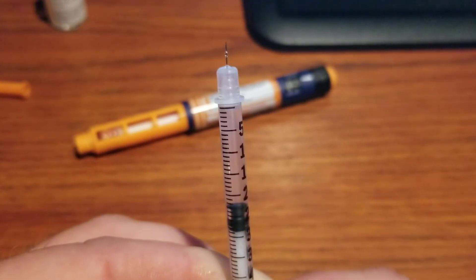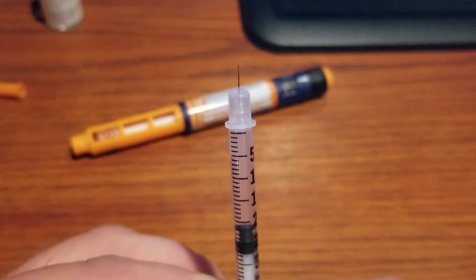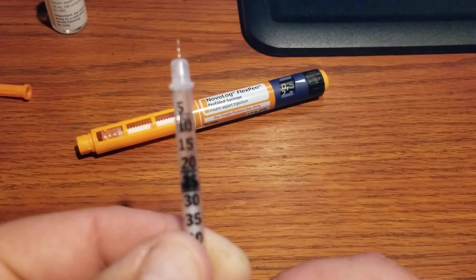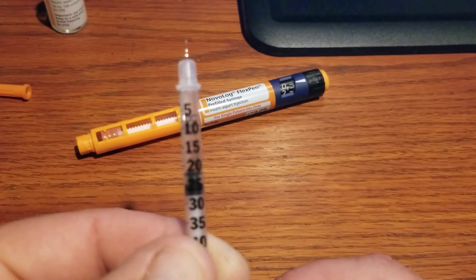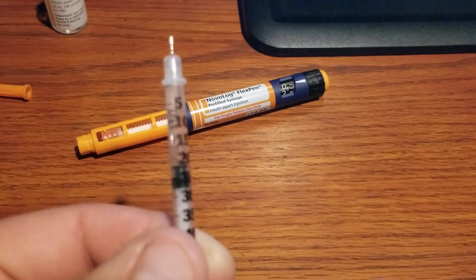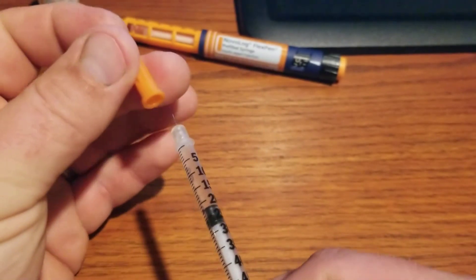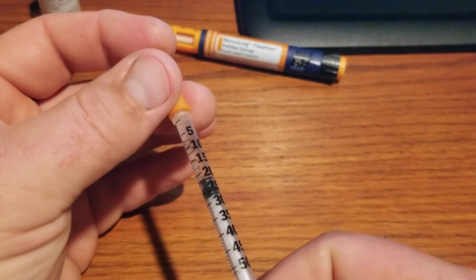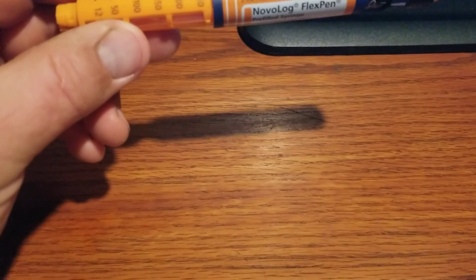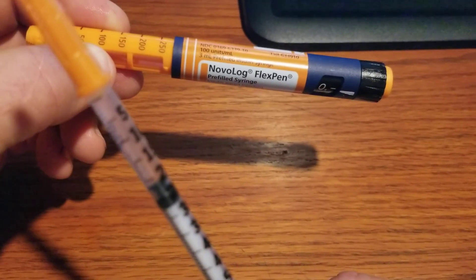Let's push the air out and see exactly what I got. Wait for that little squirt to clear the air out of the needle — there it goes. I got 22 units extra out of this pen that was completely used up. Probably worth about five dollars worth of insulin that normally just gets thrown in the trash. That stuff's important to me. I'll try to make another video better explaining U300 and U500 insulin differences and why this would be dangerous if you're drawing from a U300 pen. But that's all I wanted to cover in this video — how to get that last little bit out of a pen. Thanks.